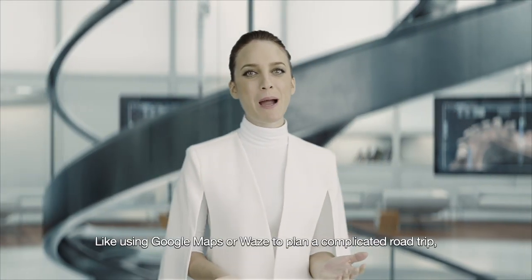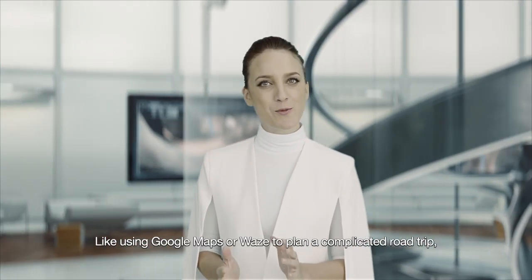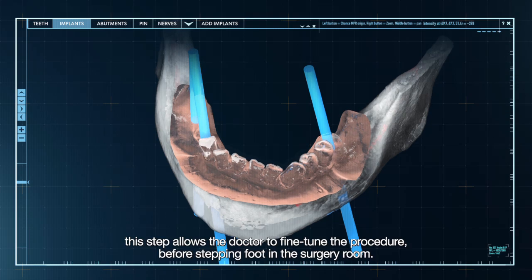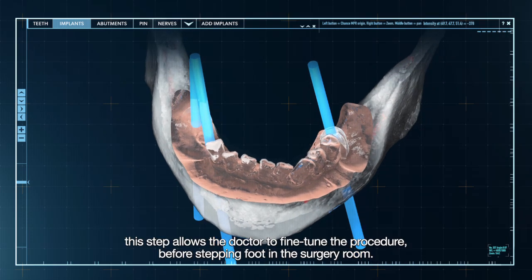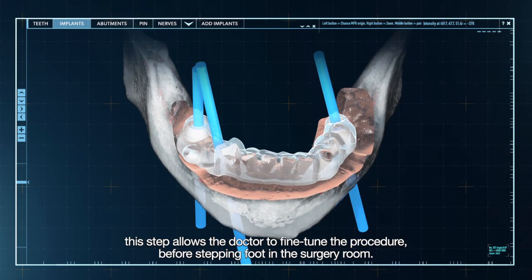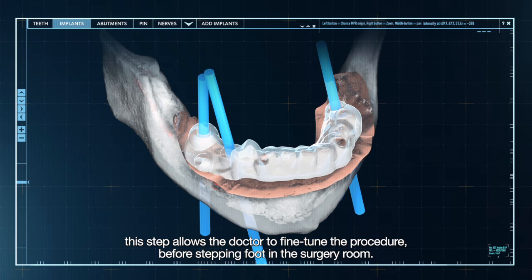Like using Google Maps or Waze to plan a complicated road trip, this step allows the doctor to fine-tune the procedure before stepping foot in the surgery room.